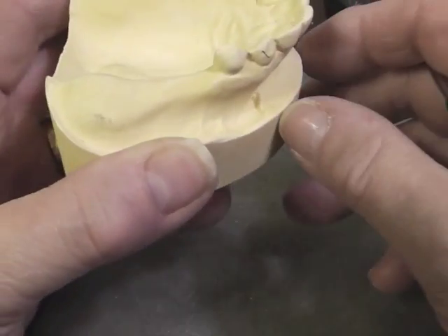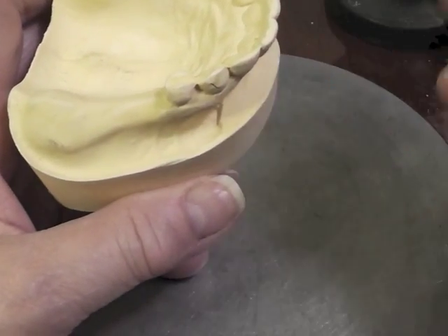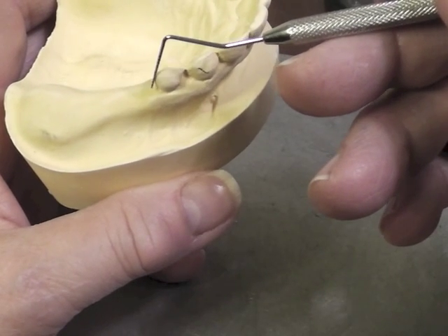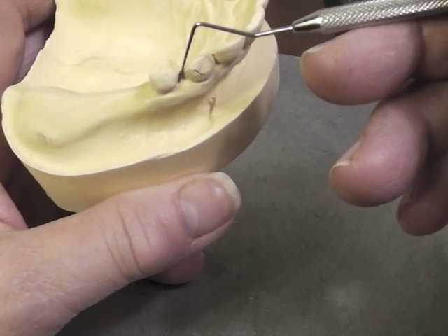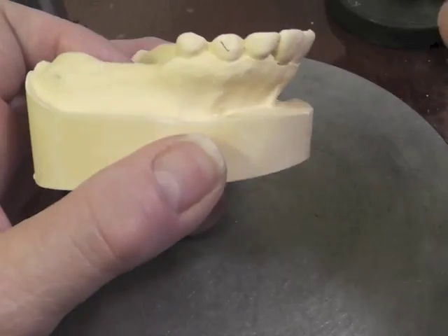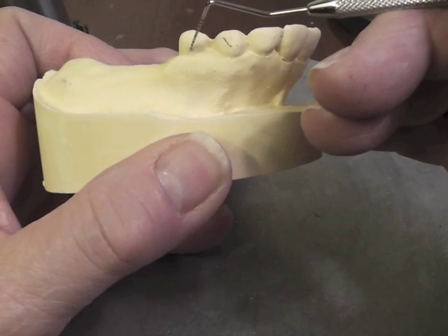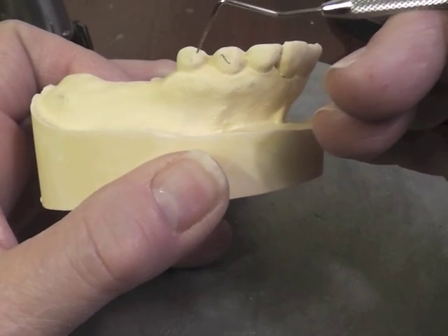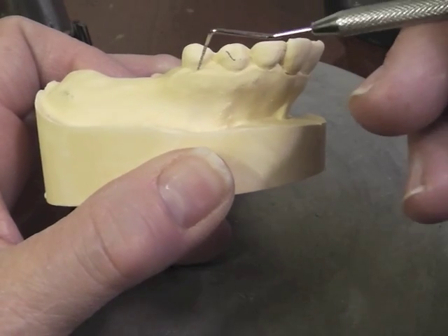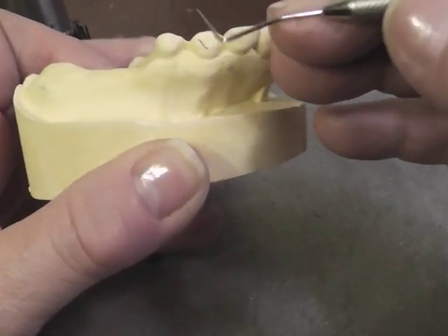What else could we use on this particular tooth? We can use the wrought wire clasp if we have a .02 mesiofacial undercut. We can use the wrought wire clasp or the I-bar, which is our clasp of choice on an extension base because of its kindness to that tooth from a torquing standpoint.